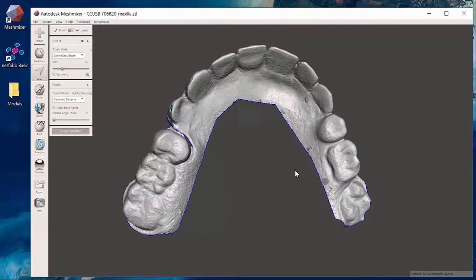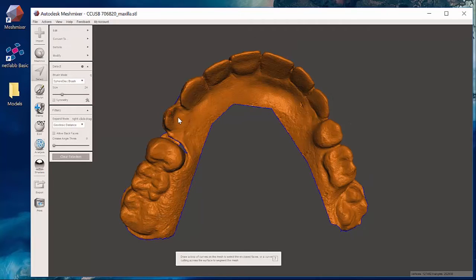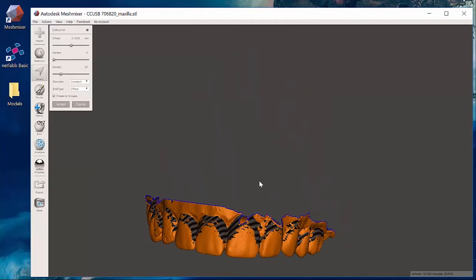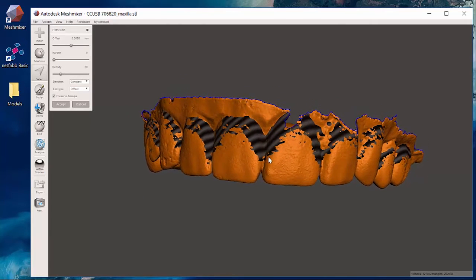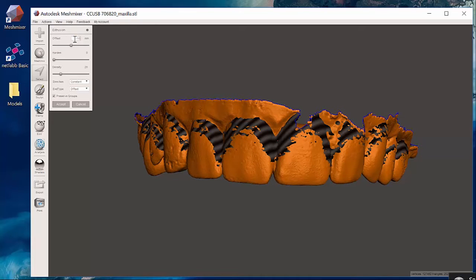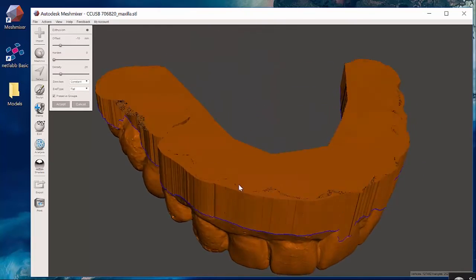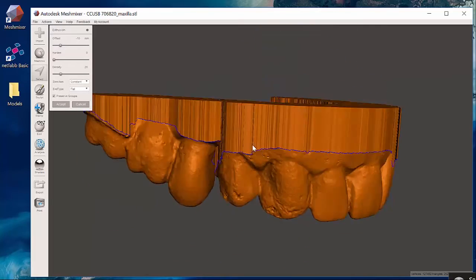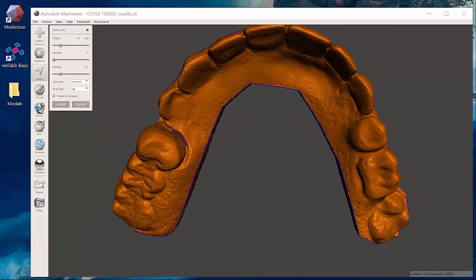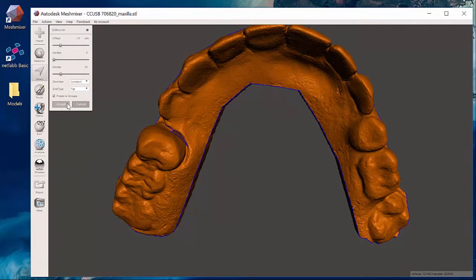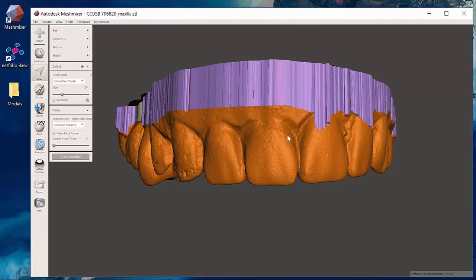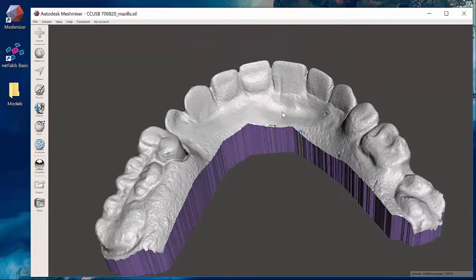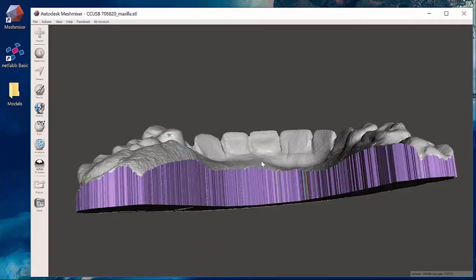So again selecting it all, extruding. Now at this point we see that it wants to extrude properly, it doesn't give me that purple color. I'm going to say just arbitrarily negative 10 and hit flat, and it's giving me a nice base. After I hit the accept button and deselect, now I've got a really nice clean opposing model ready for 3D printing.